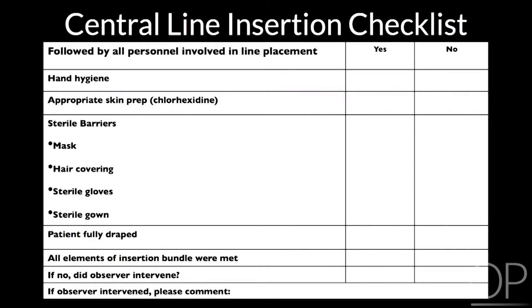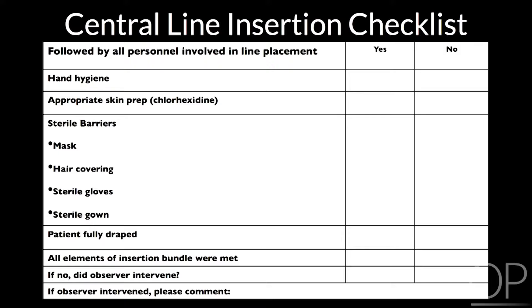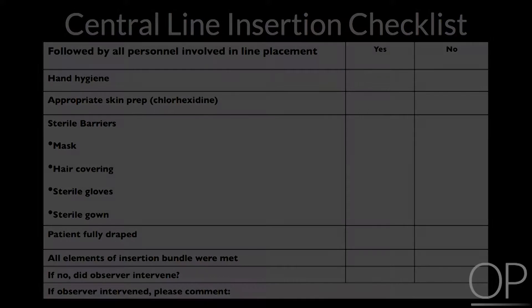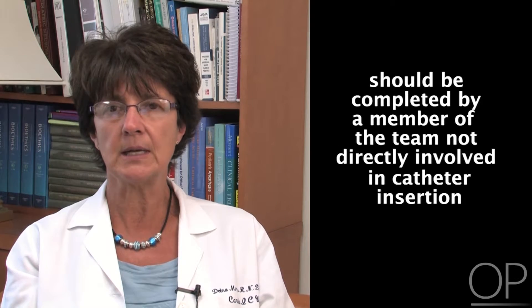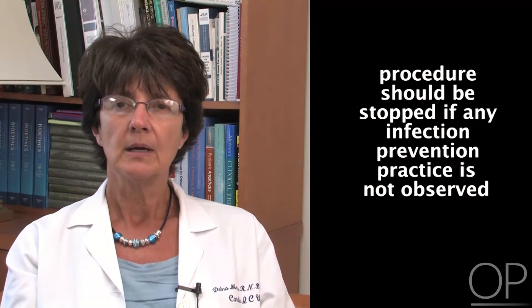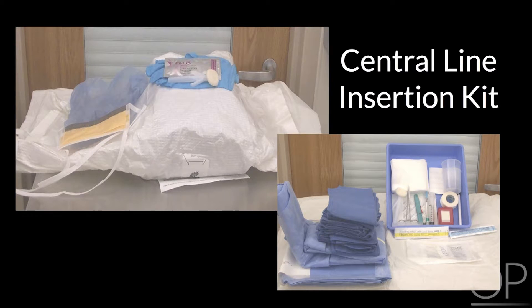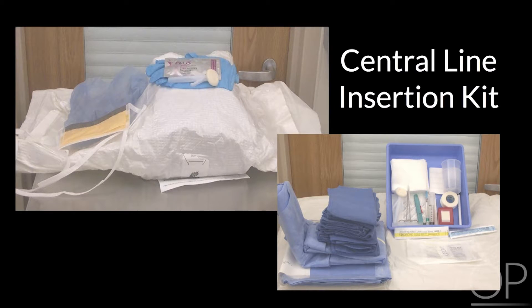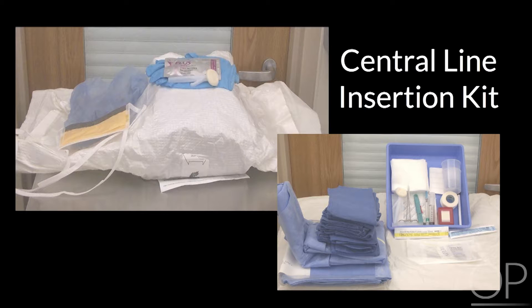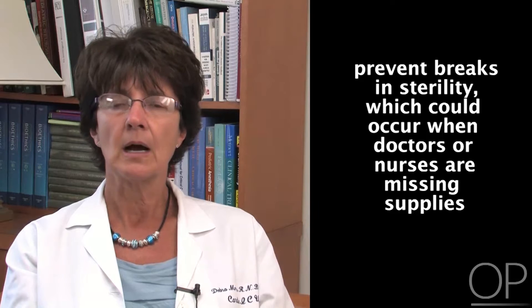A central line insertion checklist should include all the infection prevention practices for sterile catheter insertion. This checklist should be completed by a member of the team not directly involved in catheter insertion, and the procedure should be stopped if any infection prevention practice is not observed. Our central line insertion kit includes all the supplies needed for line insertion. The use of a kit or cart will prevent breaks in sterility that could occur when doctors or nurses are missing supplies.